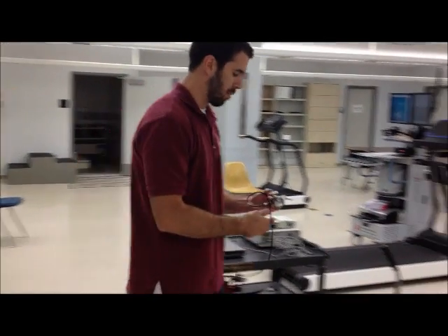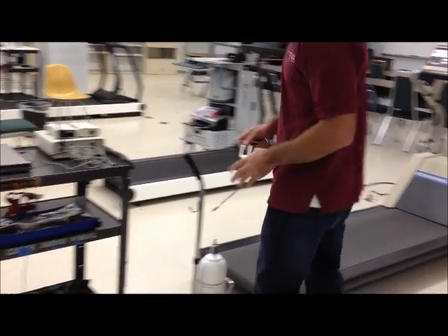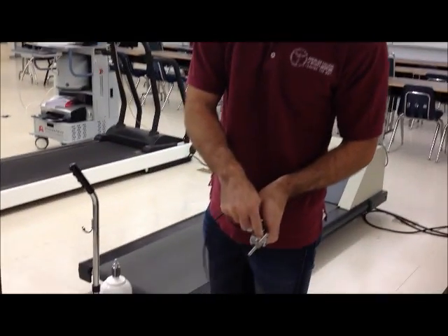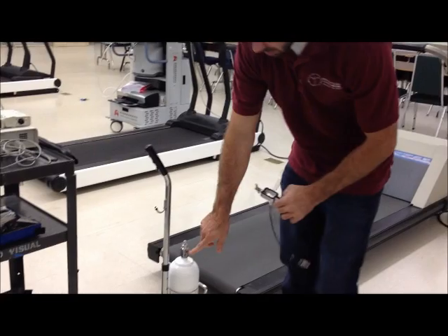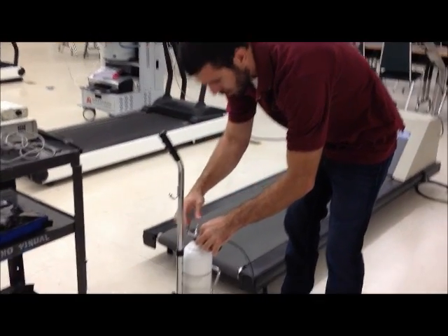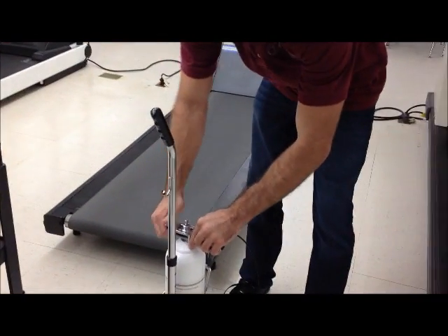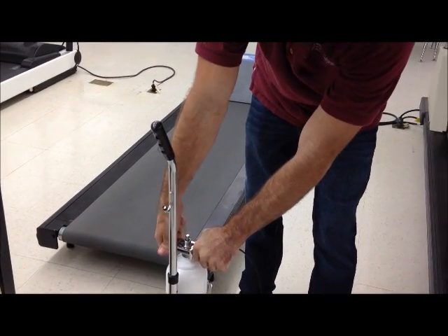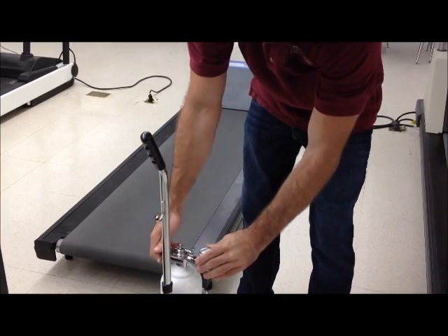First thing you want to do is get your regulator and put it on the gas tank. There are these little hinges here that are going to go into this side of the gas tank. Make sure they go flush and that you tighten it down, but don't tighten it too tight, just make sure it's fairly tight on there.